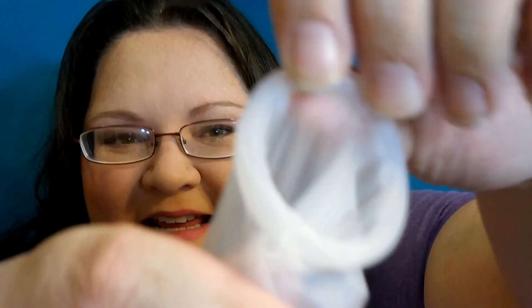Now as for the condom, when you are rolling up a silicone condom, it kind of gets stuck on itself. Do you see this? How it kind of wrapped over the top? Right here — it just keeps doing that as you're trying to roll it onto the penis. It just keeps getting stuck on itself. And we had that problem the very first time that we used the Stork OTC, and I didn't want it to discourage anyone else.